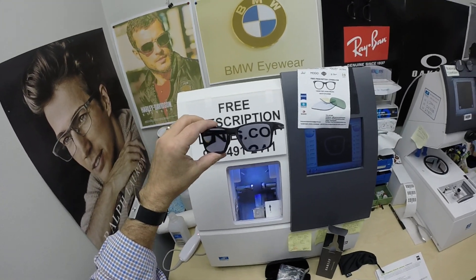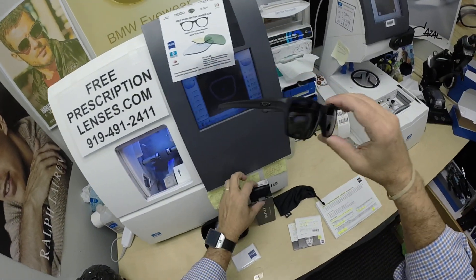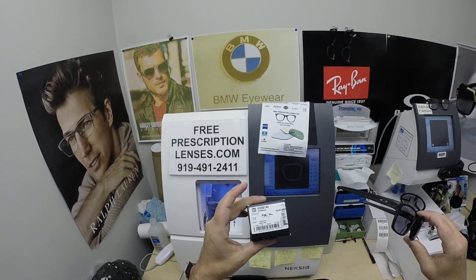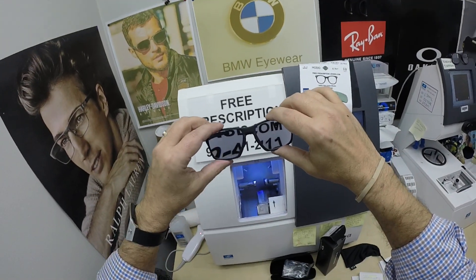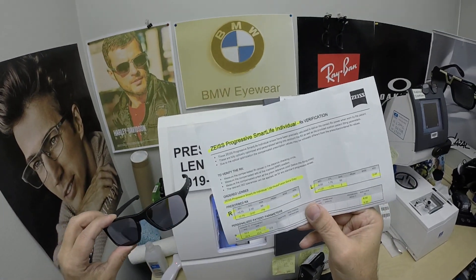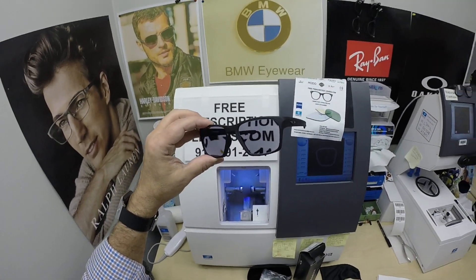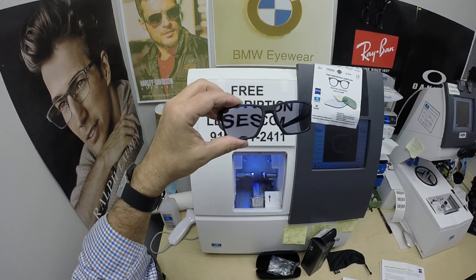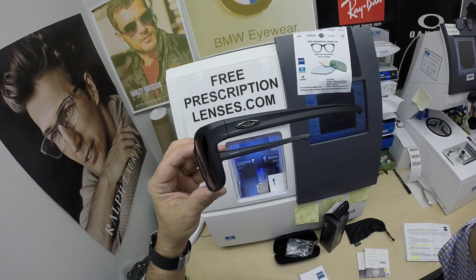But Don in Pinehurst, Texas, thank you again for the purchase of the Oakley 8140 Light Beam. This is size 55, color 01 — the satin black with the photo fusion extra gray lenses. The Zeiss premium progressive Smart Life Individual lens, the extra gray with the Duravision platinum anti-glare treatment. And now hopefully everyone else has gotten a chance to see how it brings that loving feeling back to glasses. Thank you.